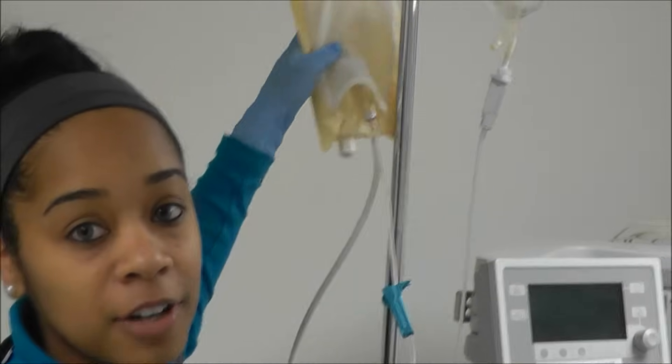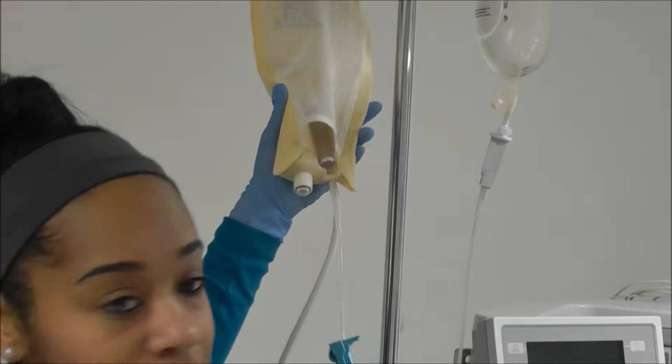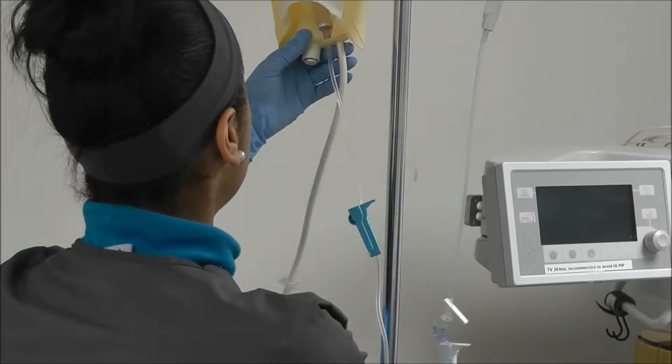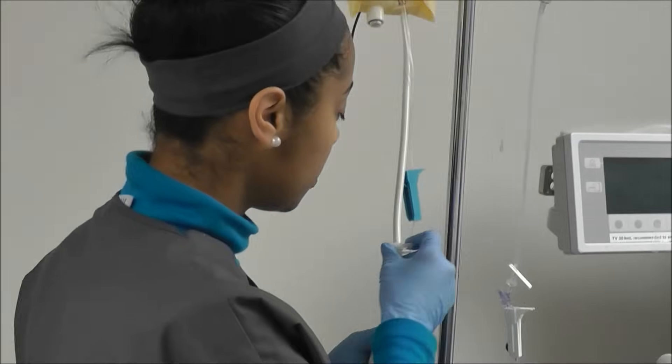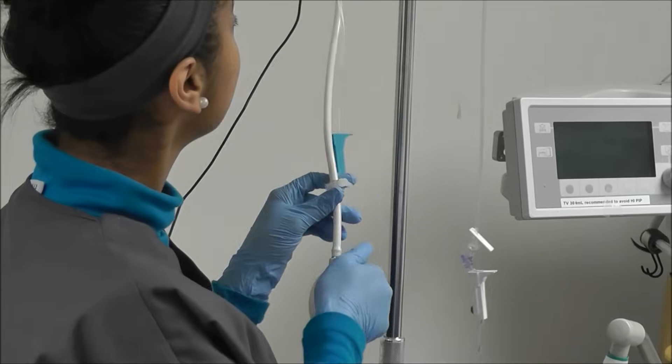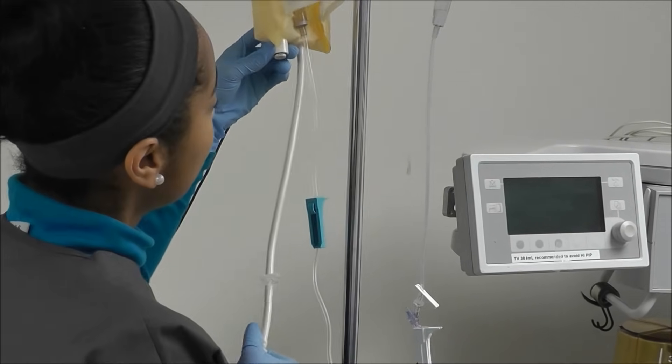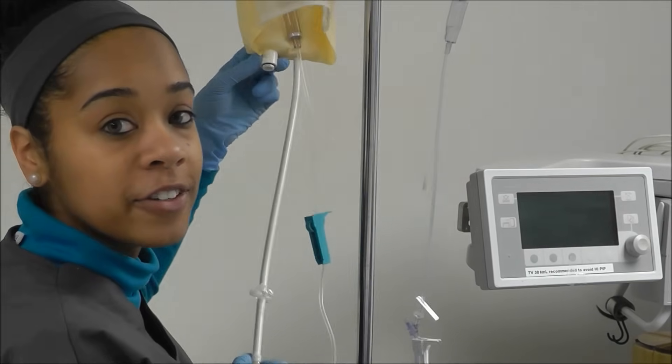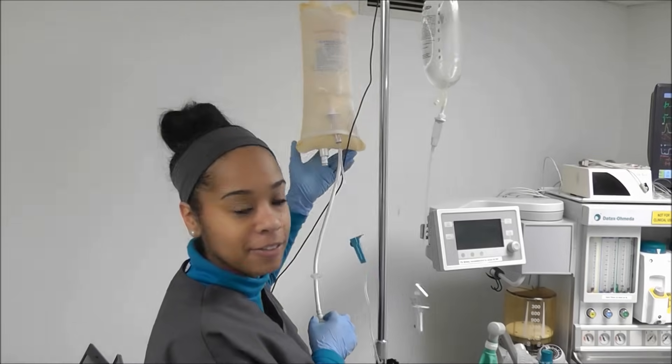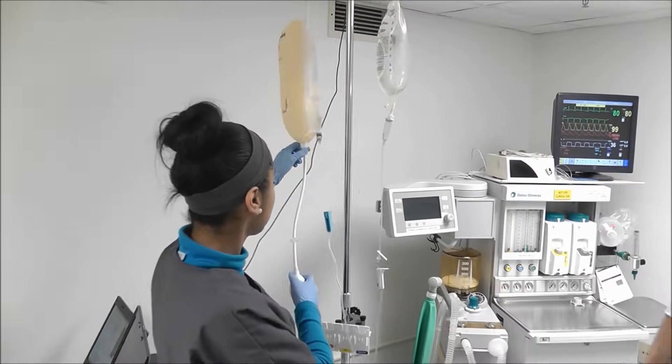This bag has to be pressurized, so first you want to blow up your pressure bag. You want to pressurize to about 250 to 300. We're at 300. There's a green line that lets you know you're at 300.